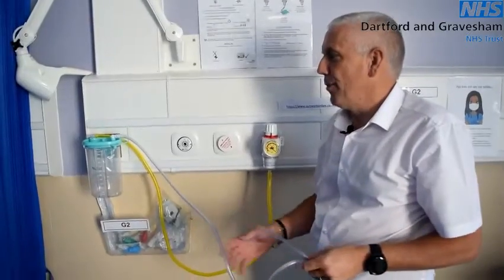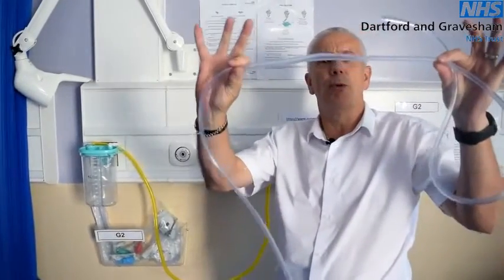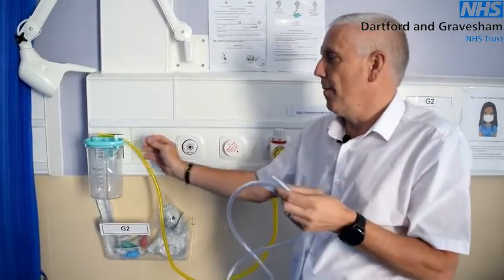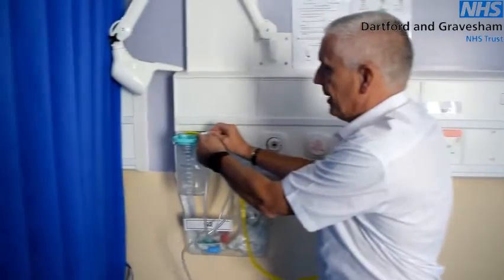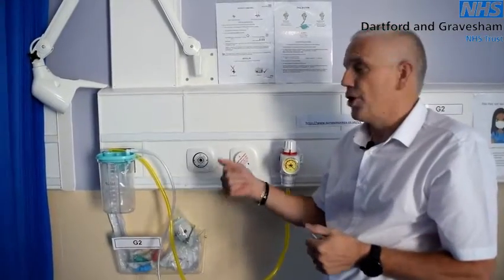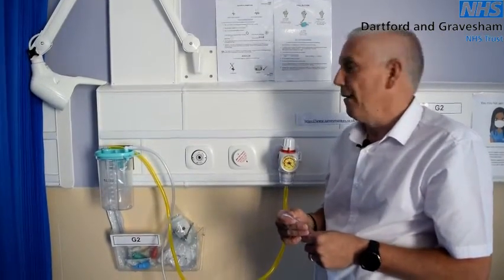Should this happen, your first point to look at would be your bubble tubing. Bubble tubing has a large bubble in the middle of the tubing. When you take this tubing from your storeroom, you should cut at the widest point, bring it back to the equipment, and trim it so the two tapers cause a tight fitting. If checking this doesn't work, change your jar liner, and if the jar liner still doesn't fix it, change your jar. Always do a visual inspection and look for cracks if this fails.